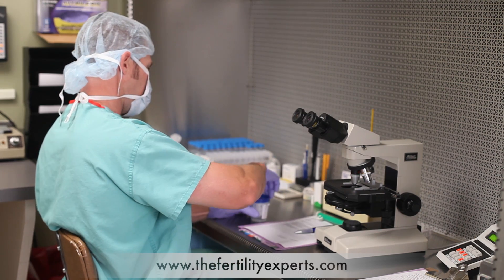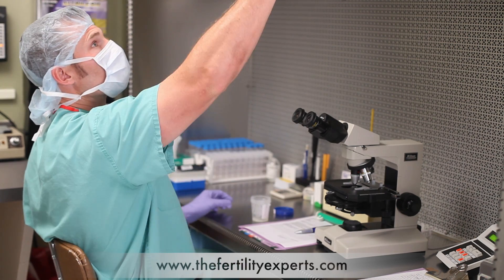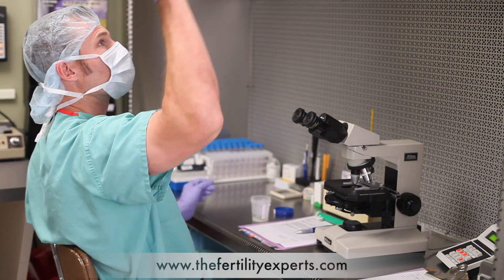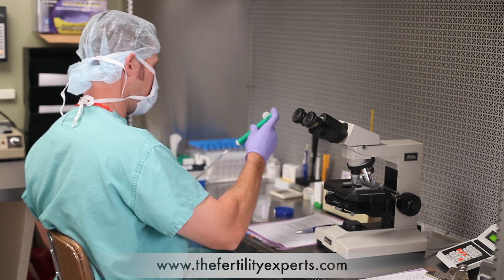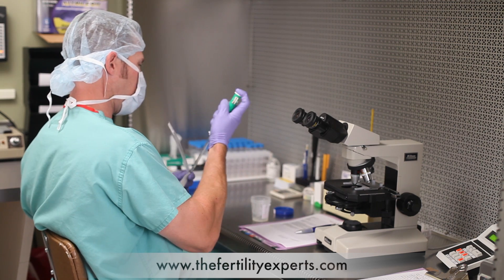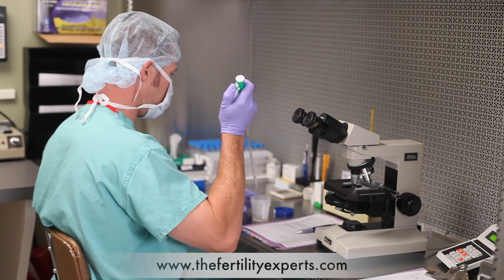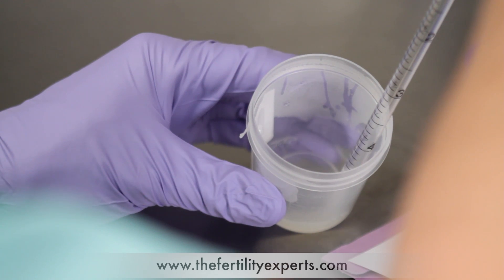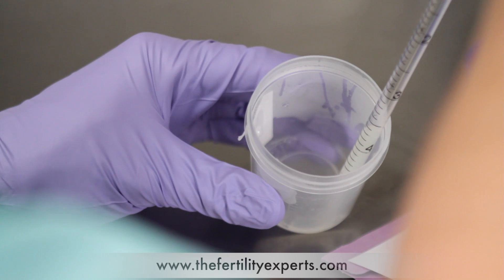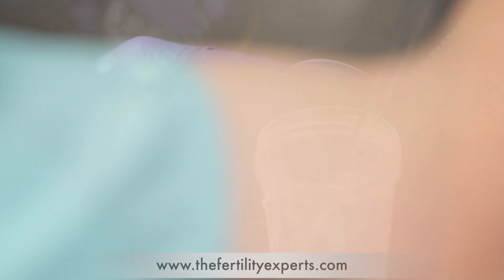Okay, now let's take a look at how we perform a semen analysis. Once the sample has had a chance to liquefy in the heated stage, we'll begin the macroscopic examination. We begin by gently pipetting the sample up and down, ensuring that it is well mixed.